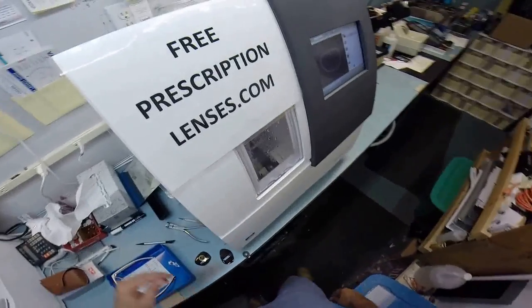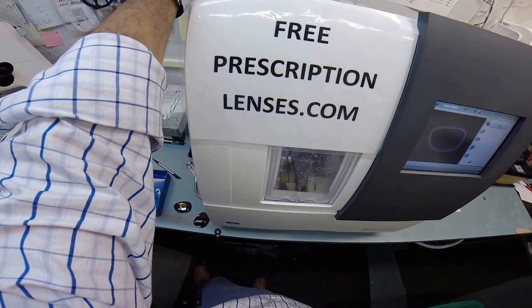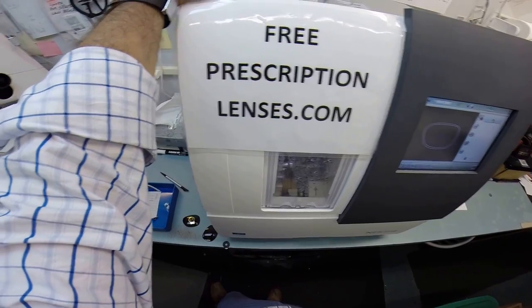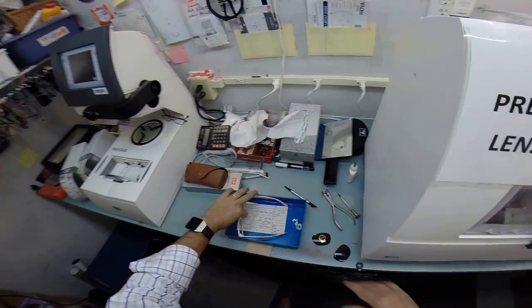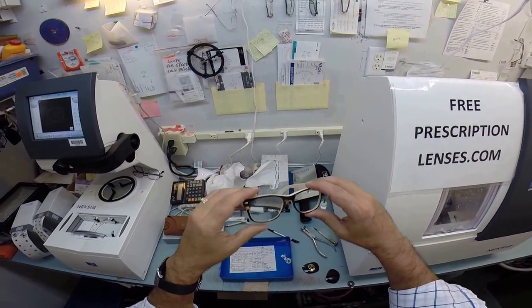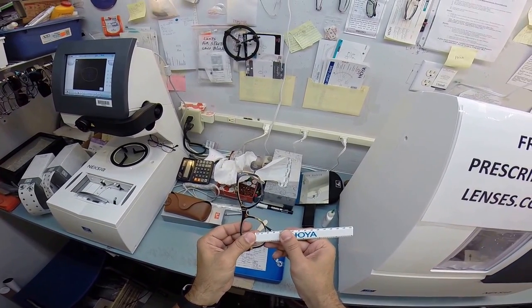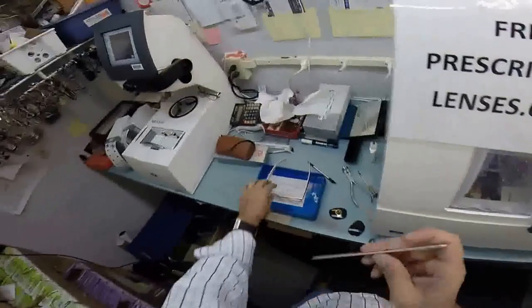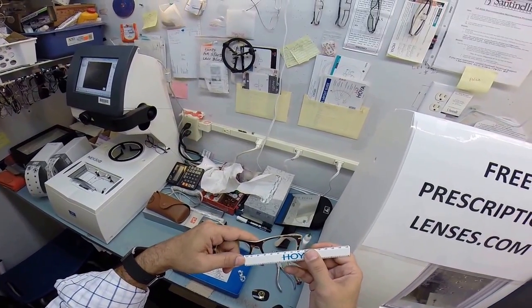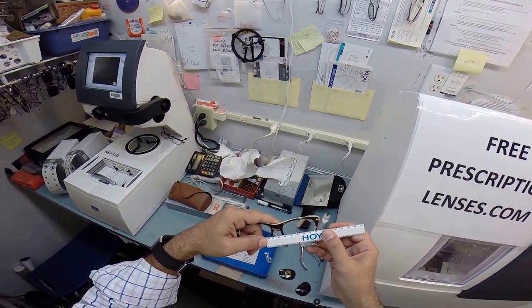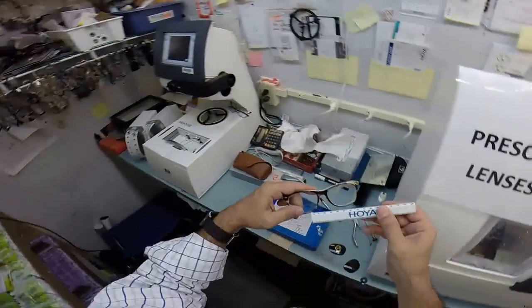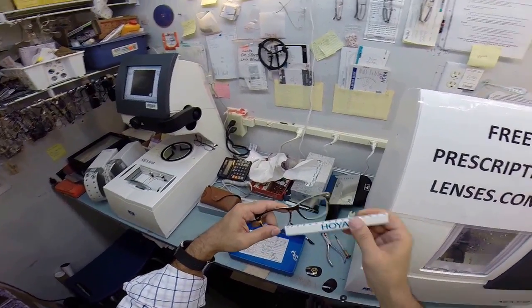And in the future, should you ever need new lenses for this frame years from now, I can send you just the lenses. I do want to keep on taking my measurements there. That's at the right height. One last measurement. I'll check when both are together, but that's looking good right there. Yeah. Okay.